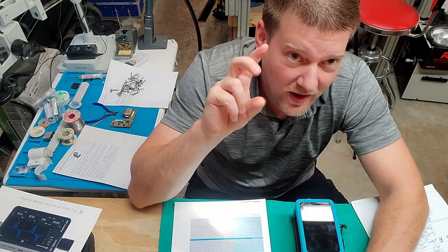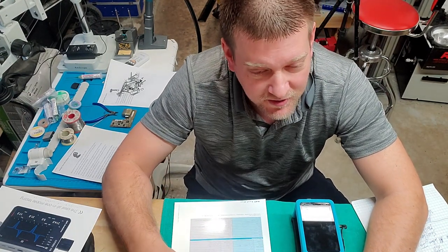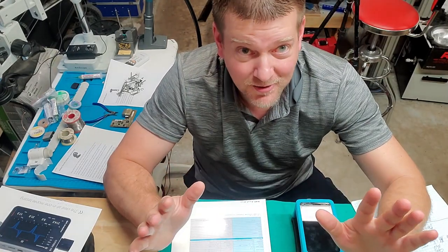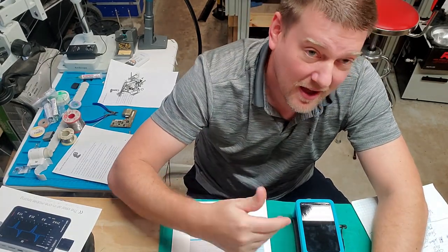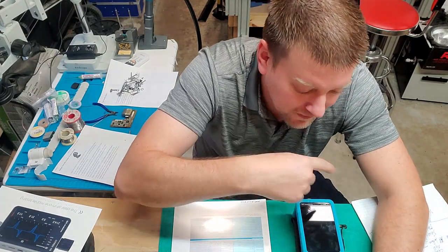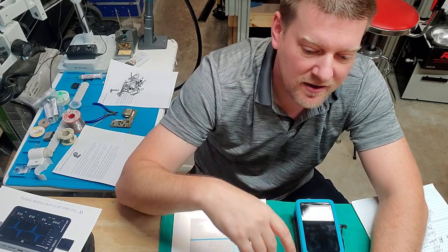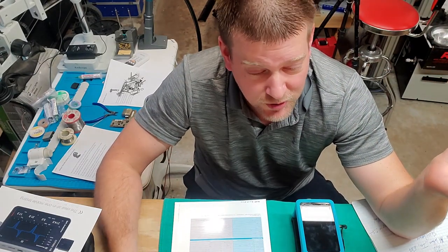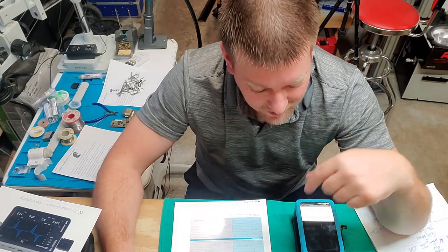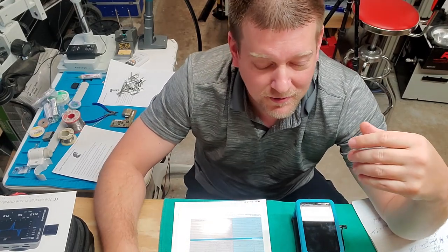There's a whole bunch of different apps you can download. I went through some for the V60 and I was amazed at how much detail they incorporated into the checklist. Also, if I had to use this with somebody else, I'd love being able to set up a profile for my specific layout. You can make numerics really large for technicians with lower visual acuity. The fact that you can customize so much makes this ideal for setting it up for different types of technicians.